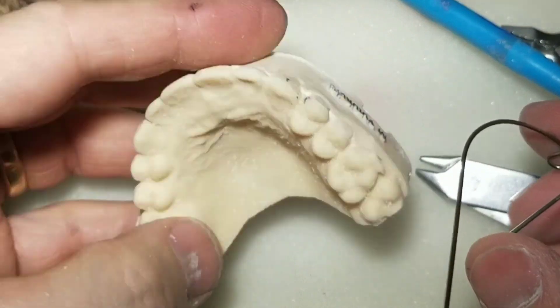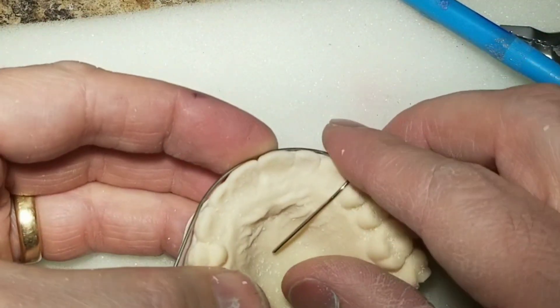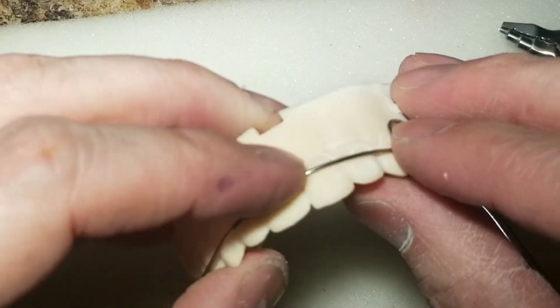So it's pretty easy to grab any type of 3D model and go ahead and start bending wires fast, rather than trying to figure out how you're going to mount this little guy.